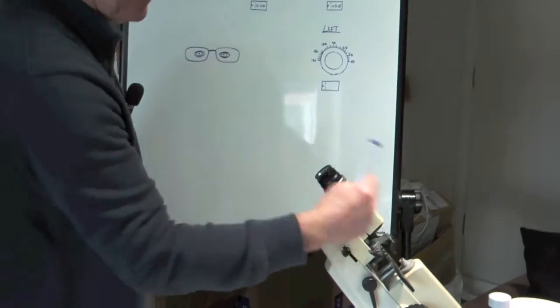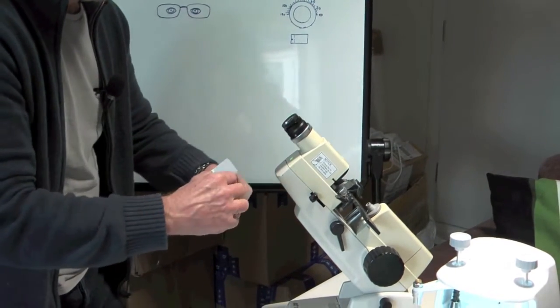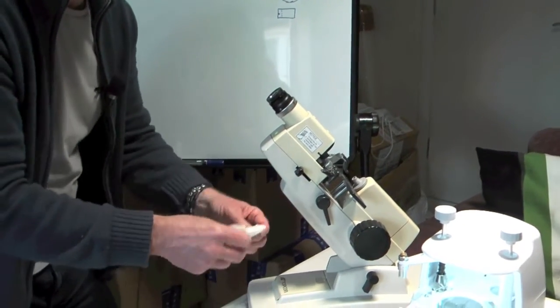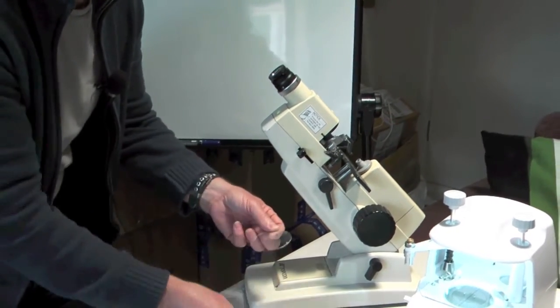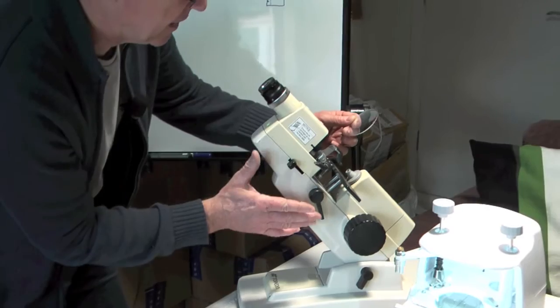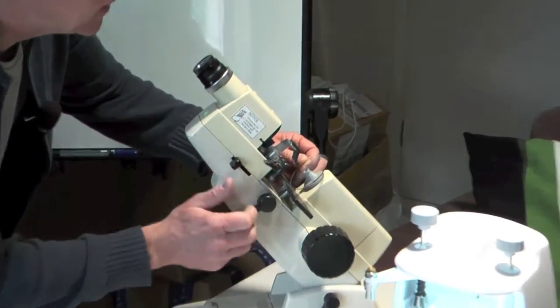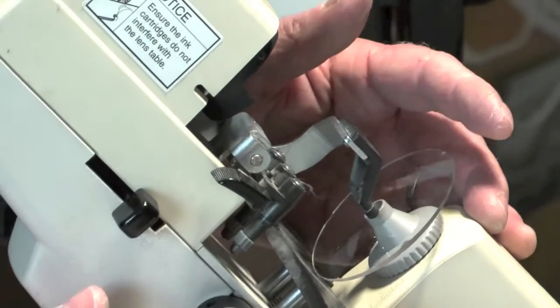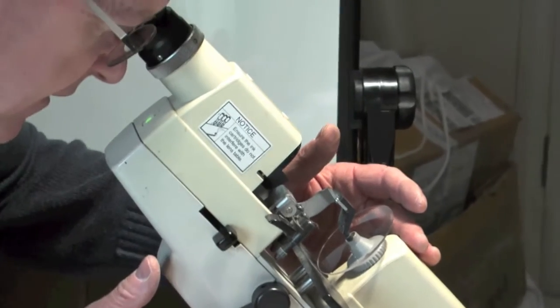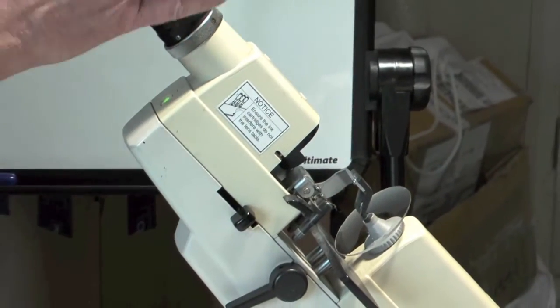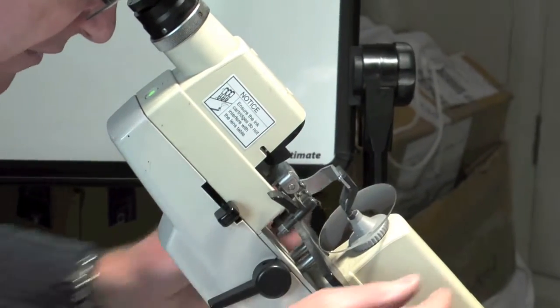The image inside the focimeter goes all blurry. Now you then put the lens onto the focimeter, and this is where you've got to rotate the lens to get the right orientation. So we put the lens in the middle. You then look through there, and I can see there's an image in there which is nice and sharp, but the lines are facing the wrong direction.